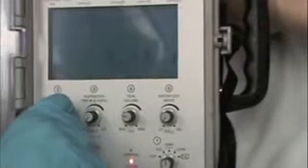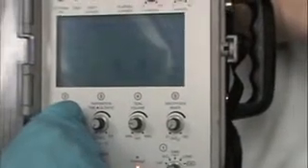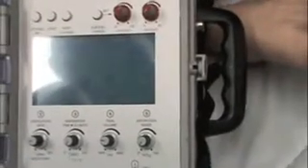Okay, so we'll say this is going to be a regular adult patient, and we're going to set a ventilation rate of 12 times a minute, which we've done here. If you make adjustments with the knob, one of the downsides of this vent is that these knobs are extremely sensitive, and so it's very easy to over or undershoot the intended target. So I'm going to dial off our PEEP a little bit. All right. So we've set a rate of 12 a minute.